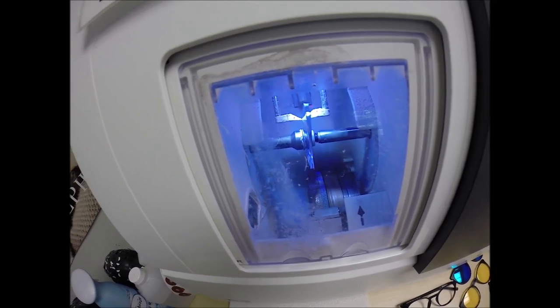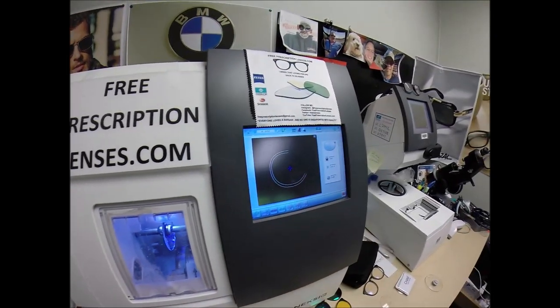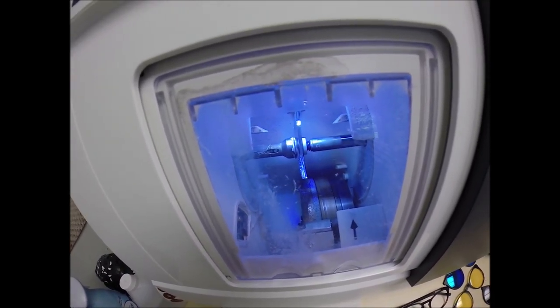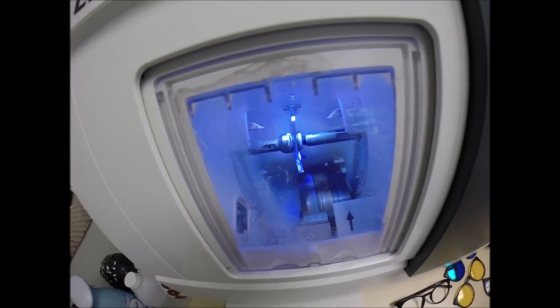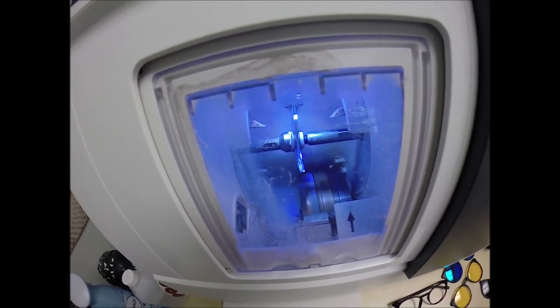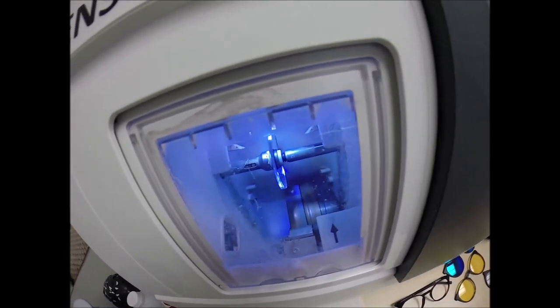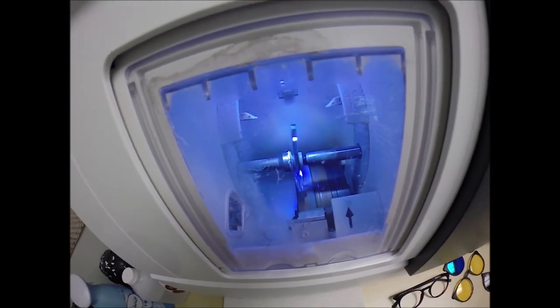Hit the green start button. The door closes. The clamp shuts, making a very awful sound. And it's going to move up and be traced by two white styluses, making sure that the lens is large enough to fit into the right side of the frame. And then on the second go around, it's measuring the thickness of the lens at every point to know exactly and precisely where to place the bevel. So you have the least amount of edge thickness showing, of which you will have none with your prescription in this frame. Well, when I say none, it might be minimal.